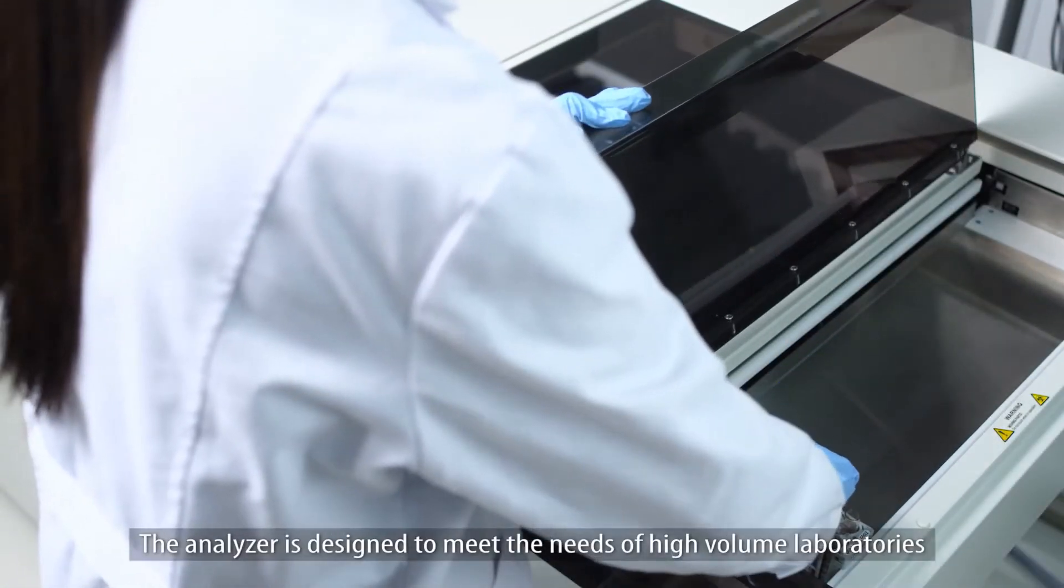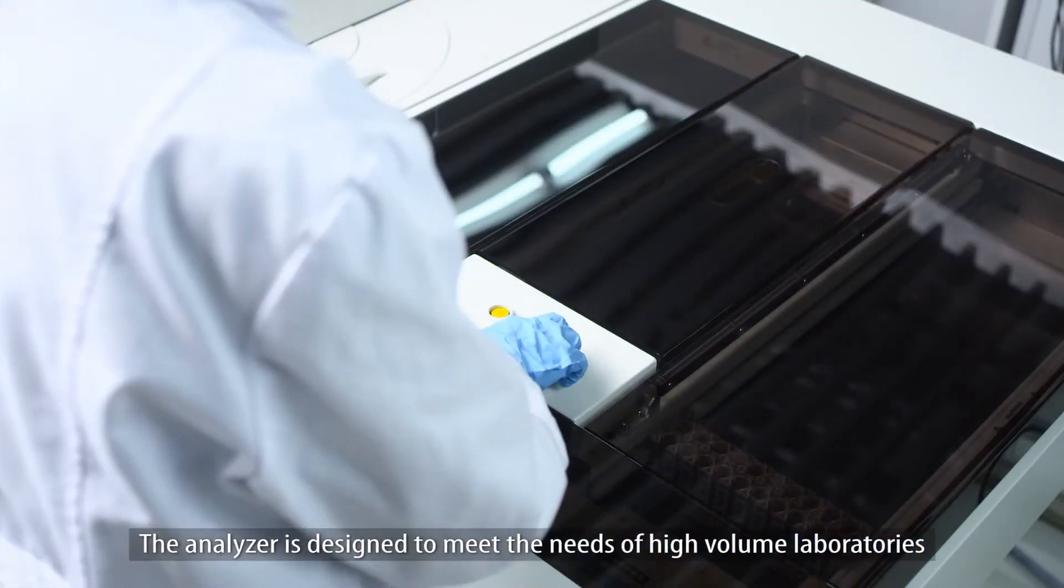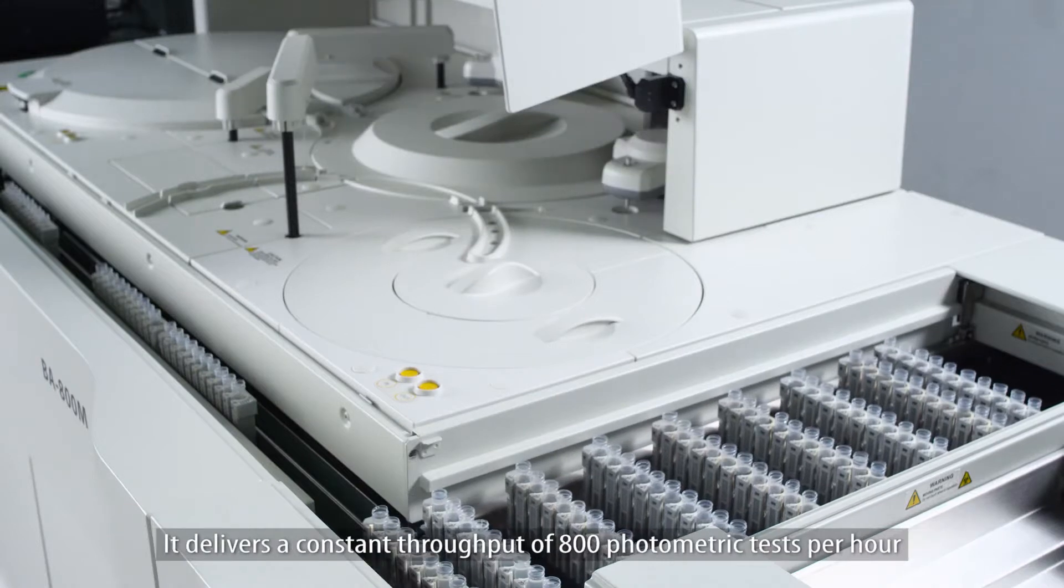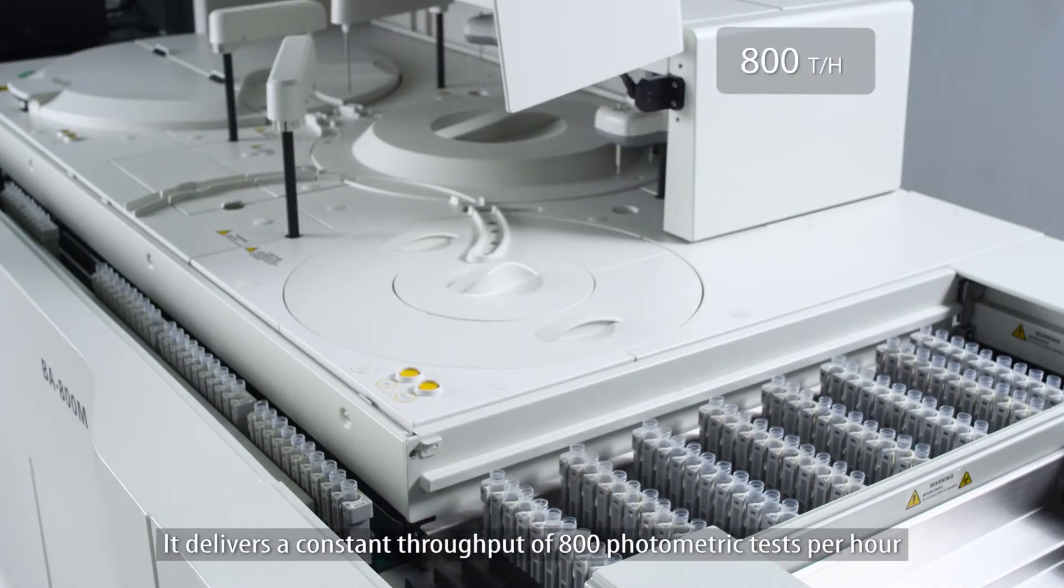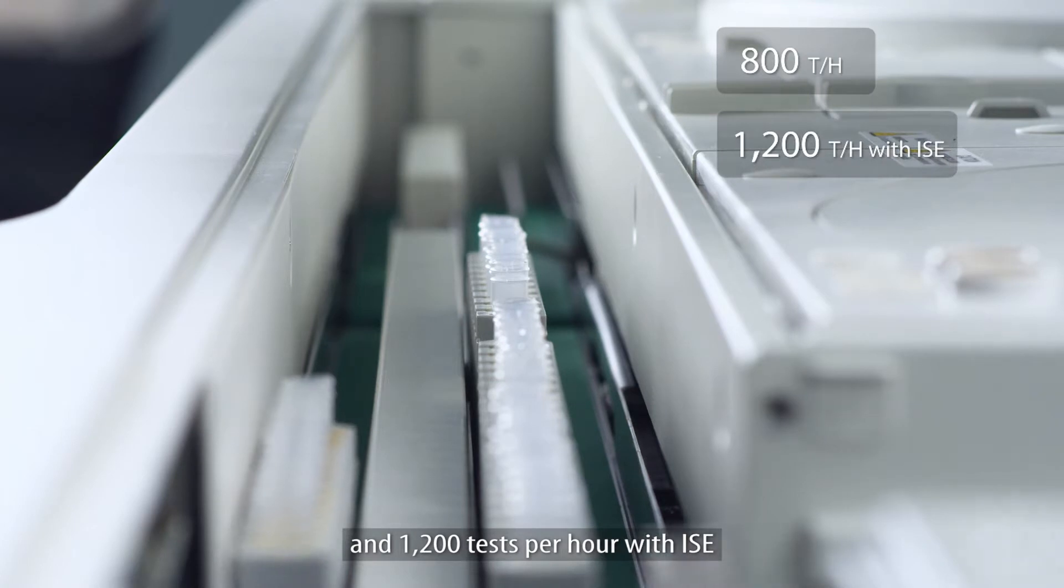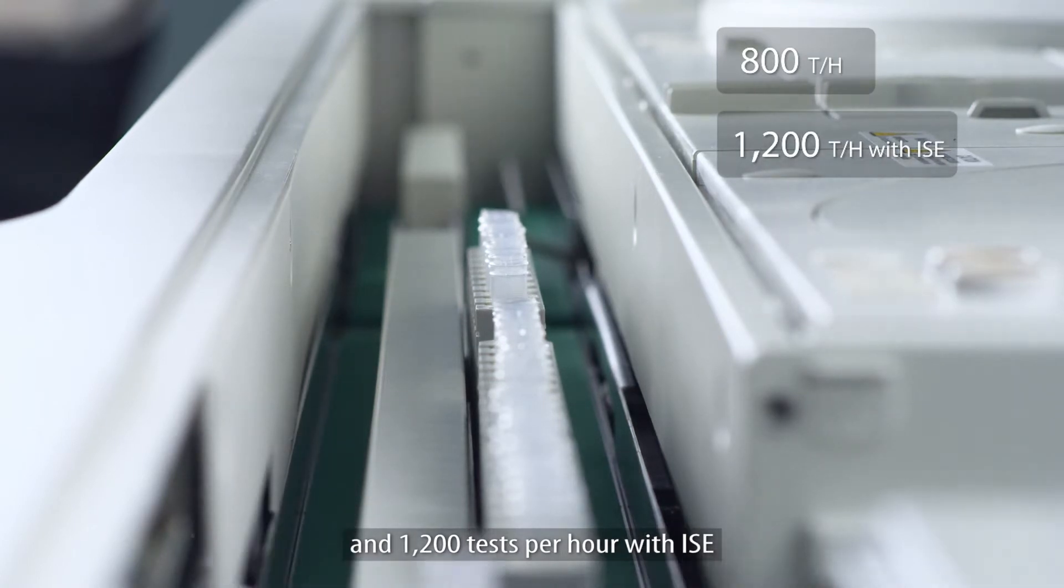The analyzer is designed to meet the needs of high-volume laboratories. It delivers a constant throughput of 800 photometric tests per hour and 1,200 tests per hour with ISE.